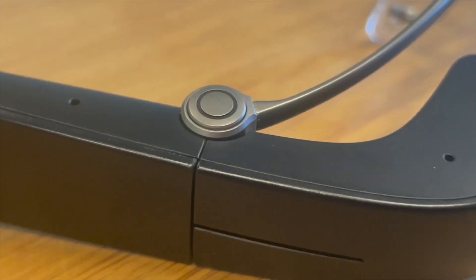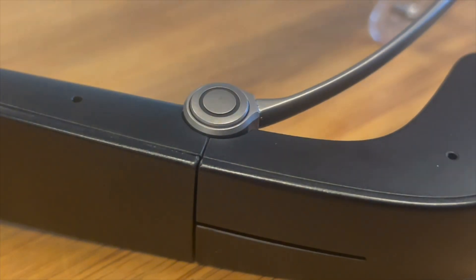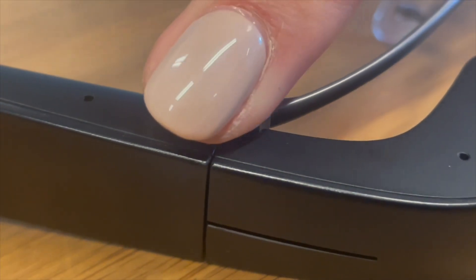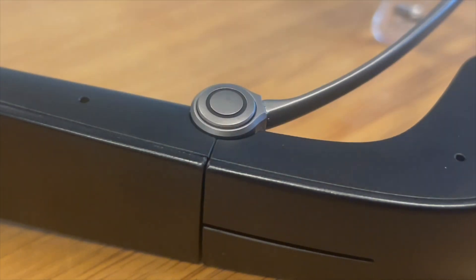So how do you activate voice commands? Voice commands can be activated anywhere you are, in any menu. You can do this by pressing and holding the hinge button. This is the button where the frame meets with the body, and it's located on top of the Envision glasses body.